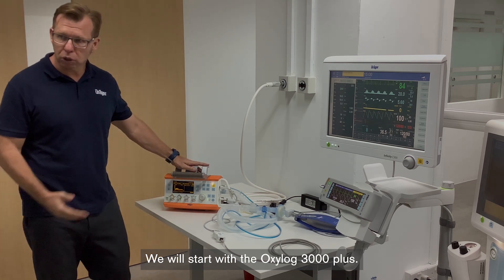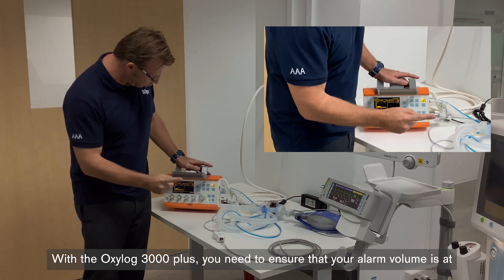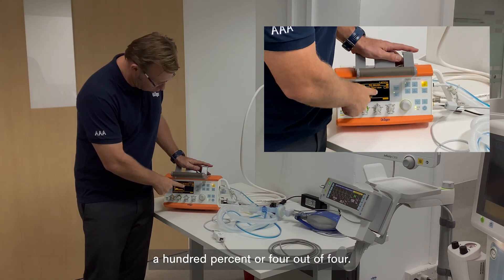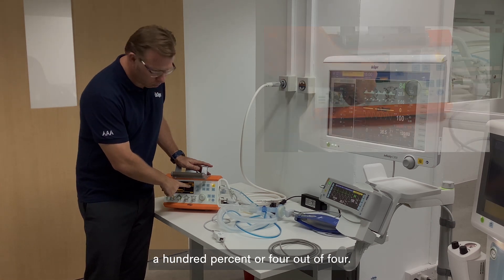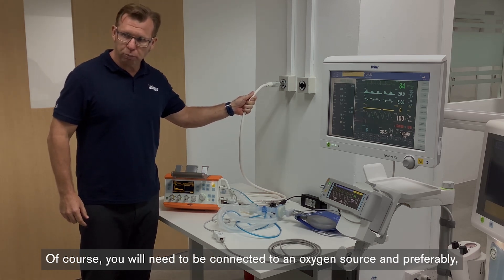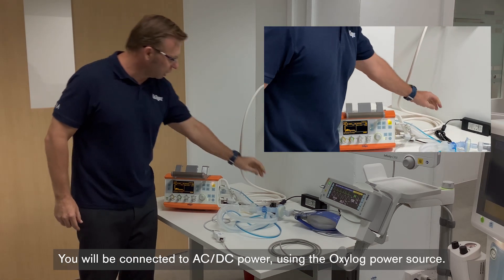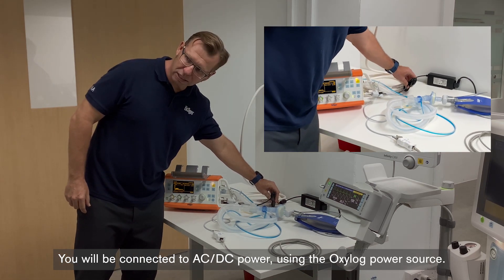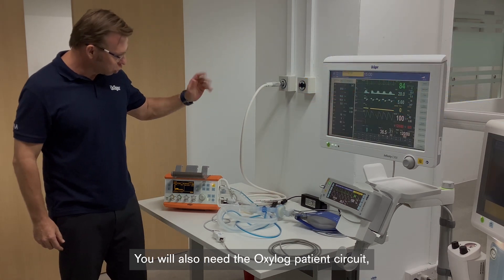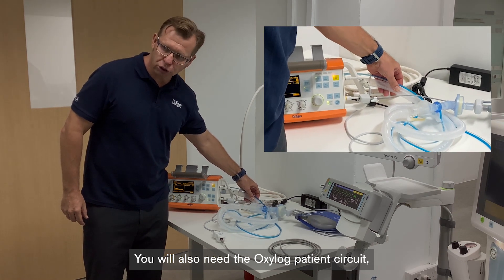We'll start with the Oxilog 3000+. With the Oxilog 3000+, you need to ensure that your alarm volume is at 100%, or 4 out of 4. You will need to be connected to an oxygen source, preferably a reliable and continuous oxygen source. You'll also be connected to AC/DC power using the Oxilog power source.